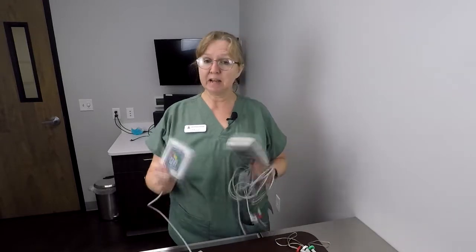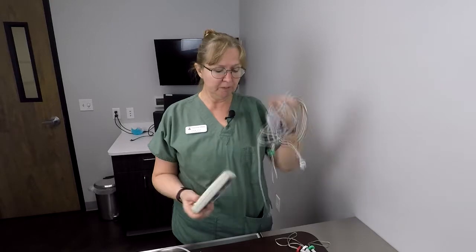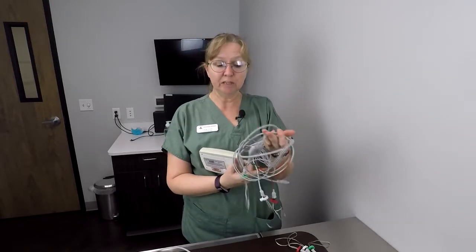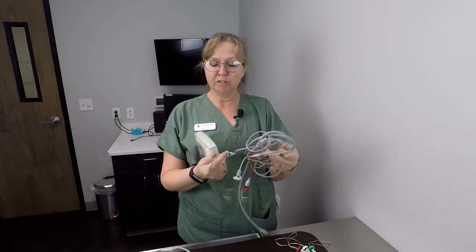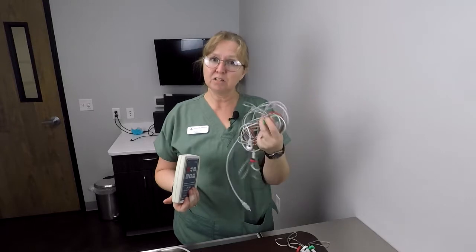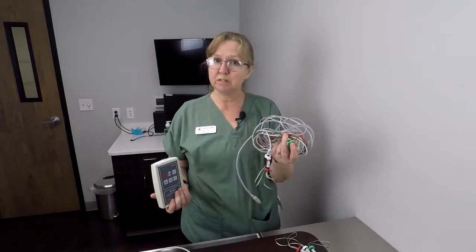You can see the difference in size between the old and the new. These old ones tended to be a little bit cumbersome — we have a lot of cords to deal with that tend to get tangled up with patients. We've also been dealing with the foot loops that require frequent re-wetting with alcohol, and that alcohol causes those to deteriorate very quickly.